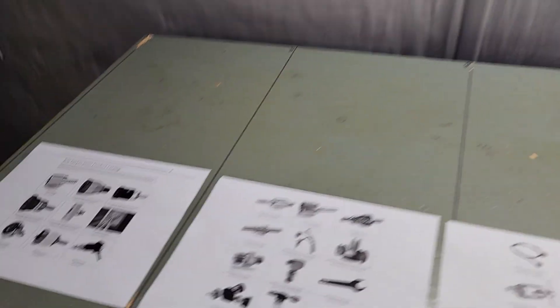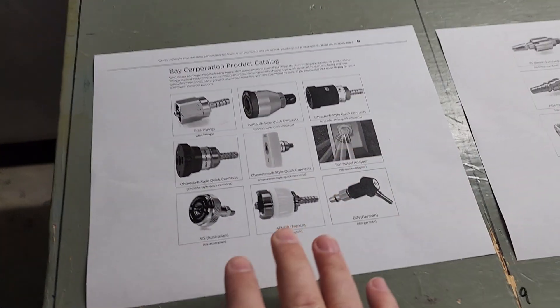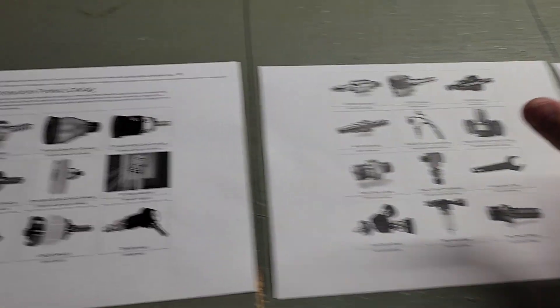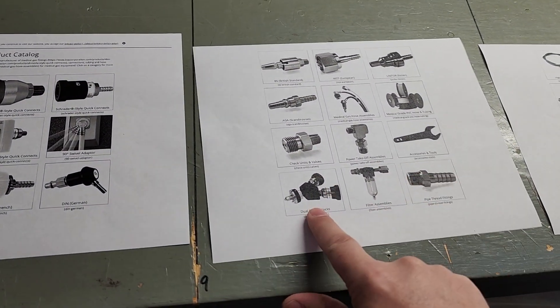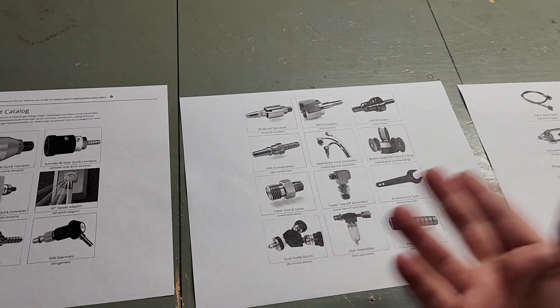We'll go over some of the most common, some of the med gas that you're going to find along with some of the fittings and maybe some other details that maybe you didn't know about. Let's go ahead and do that right now. First off, medical gas has a lot of options—all different types of fittings, different attachments, different options that you can get. It's very complex, so please bear with me.